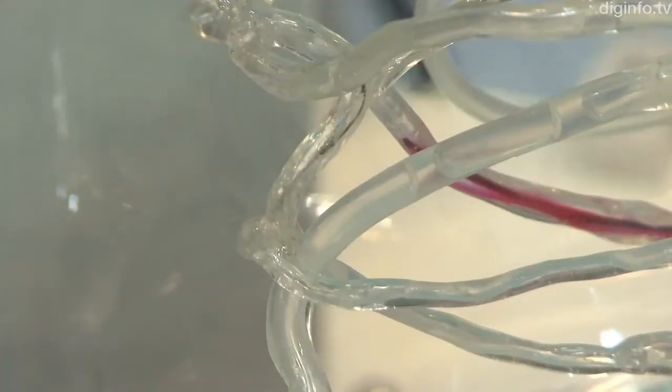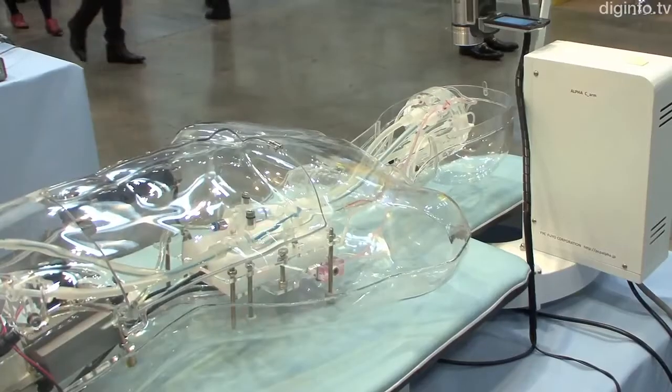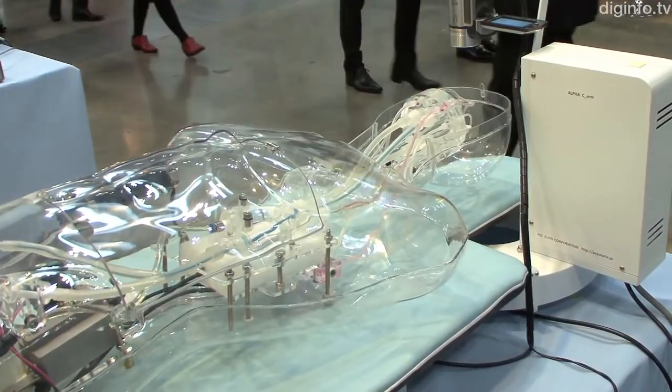It can be used in university lectures and for testing equipment, as well as in conjunction with angiography equipment on a radiographic table.